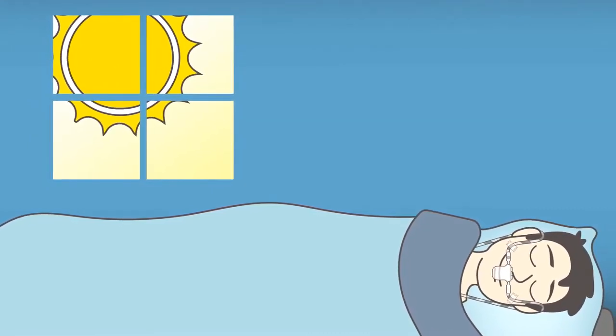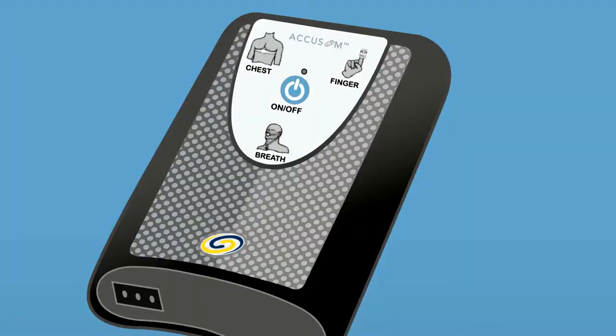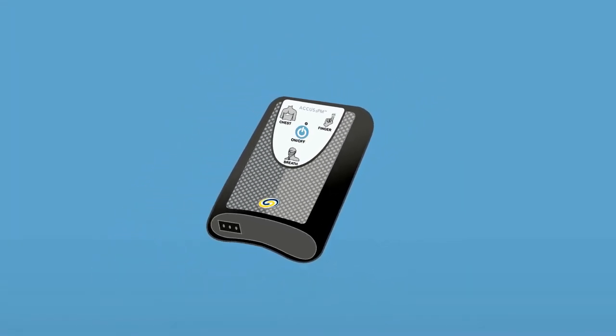When you wake up, you will need to make sure you follow these instructions in this order. Disconnect all wires from the device.